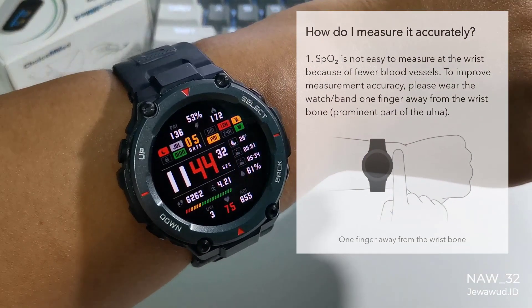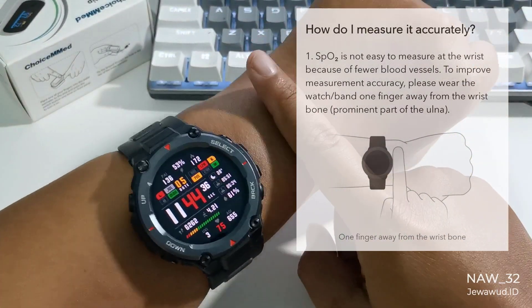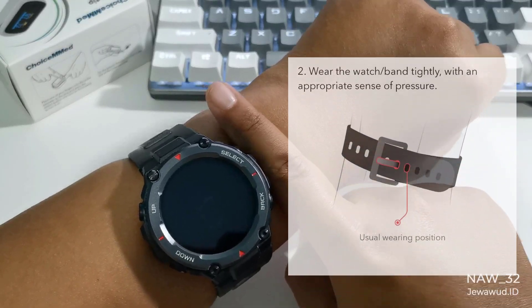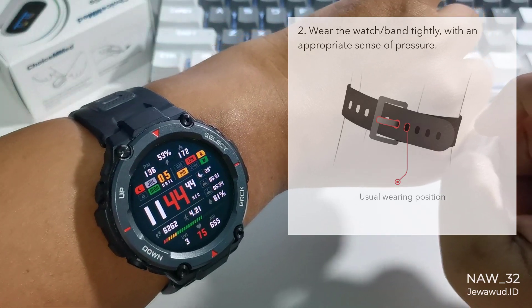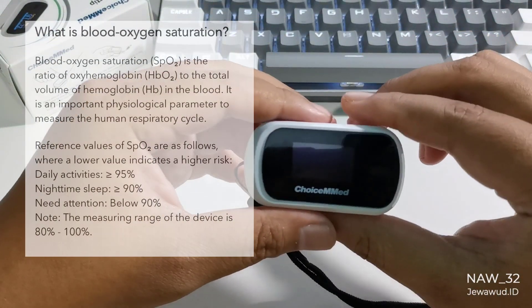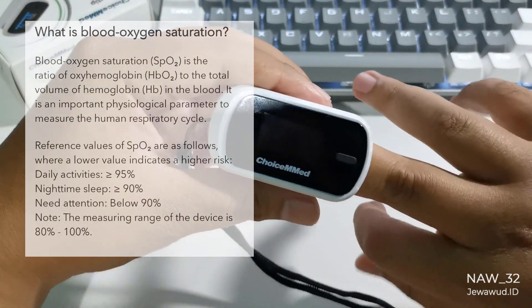Hello guys, welcome back to my video. Today I want to compare the Amazfit T-Rex Pro's SpO2 and heart rate sensor accuracy versus a real fingertip pulse oximeter. In this video I will use the oximeter from ChoiceMED MD300CN310. Is the oxygen saturation measurement on the Amazfit T-Rex Pro accurate enough and reliable in the era of the COVID-19 pandemic? How is the result? Let's check it out.